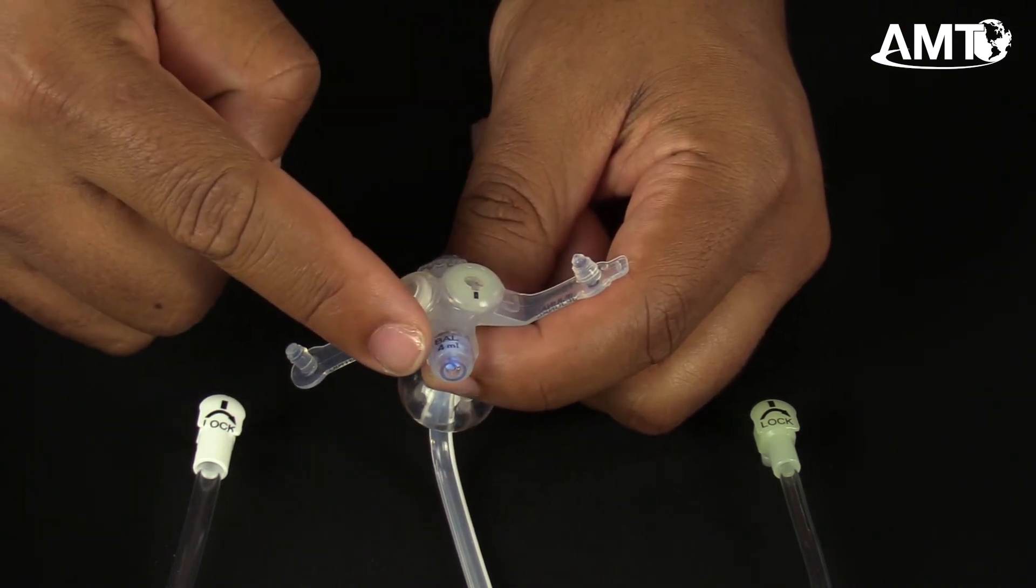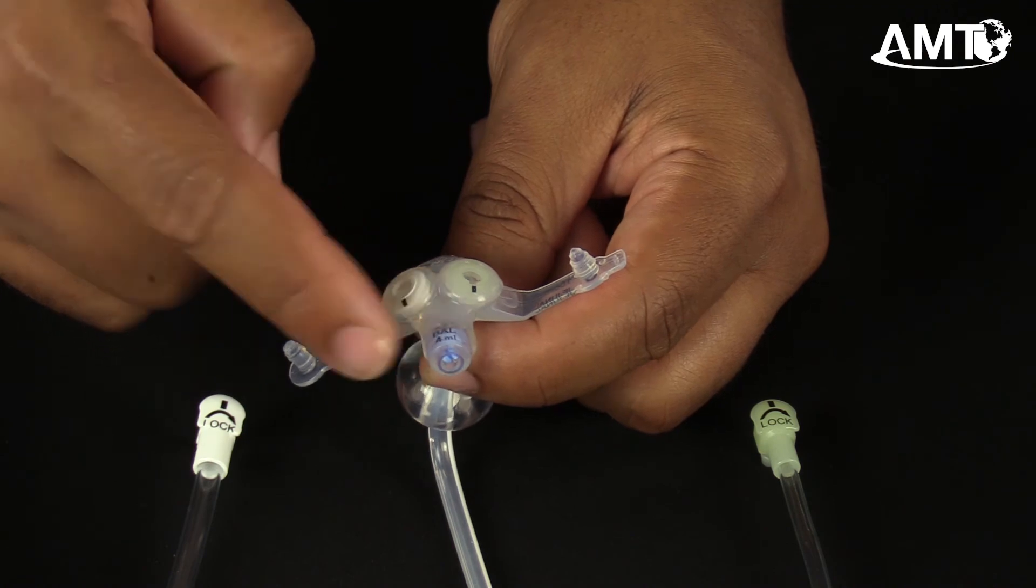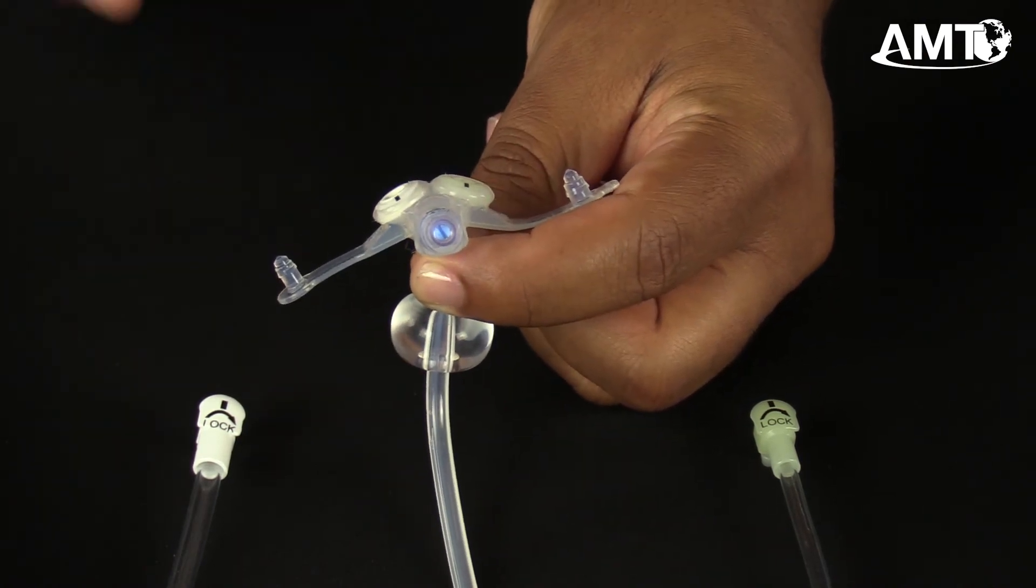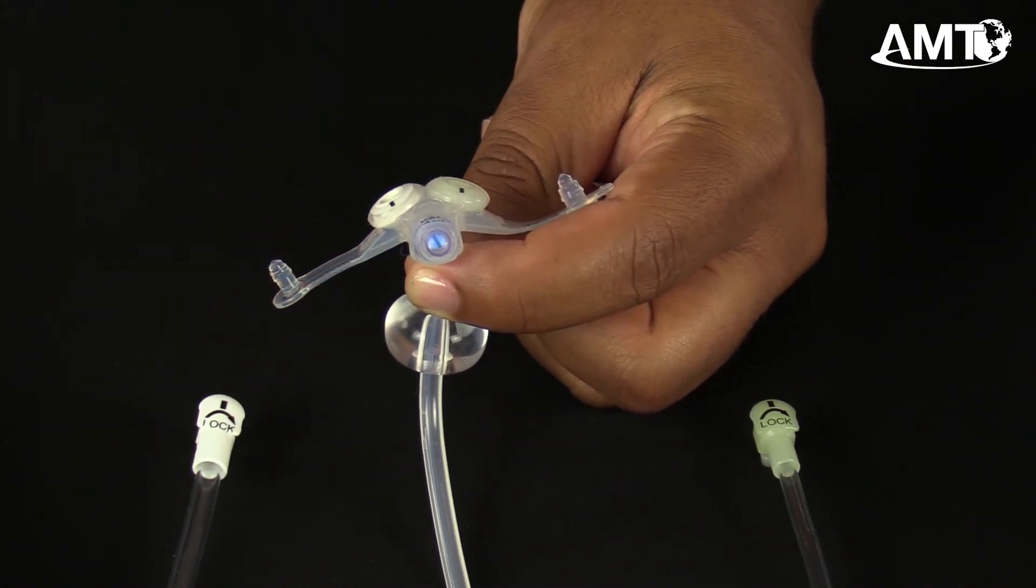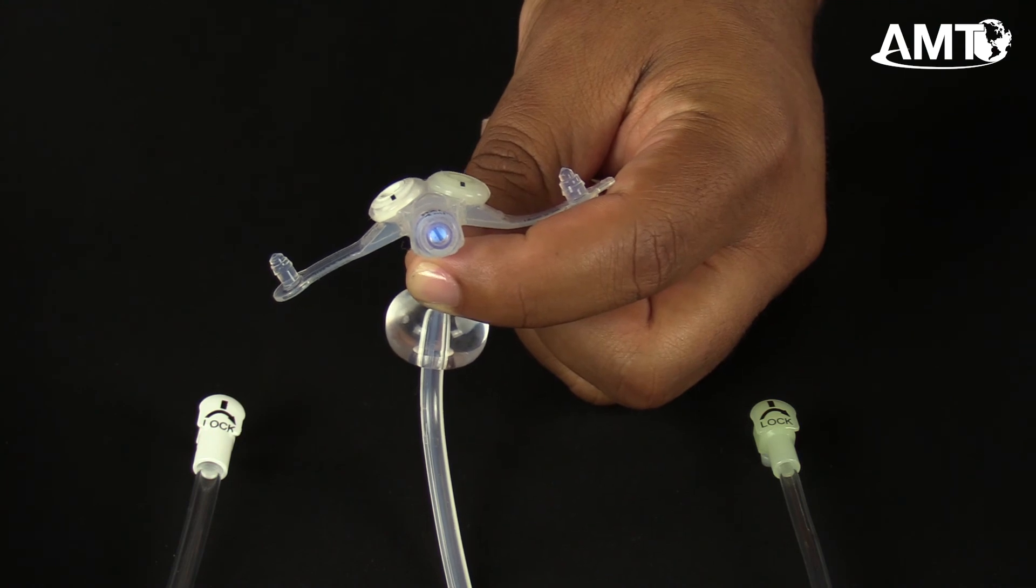A balloon fill valve with the recommended balloon fill volume printed right on the top and an internal retention balloon with a unique apple shape, which helps keep the device in place.